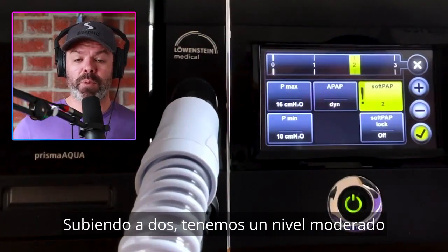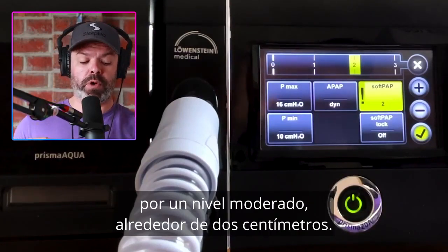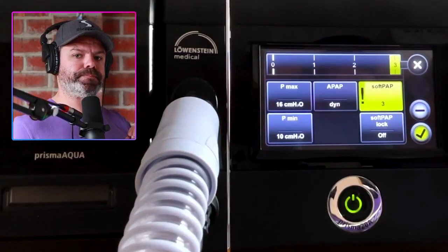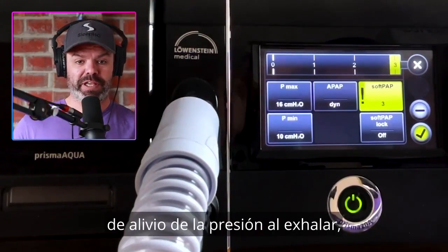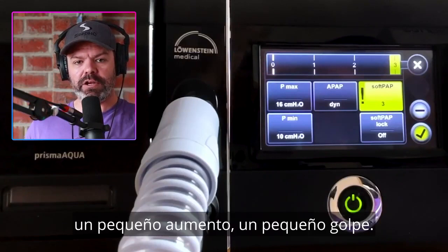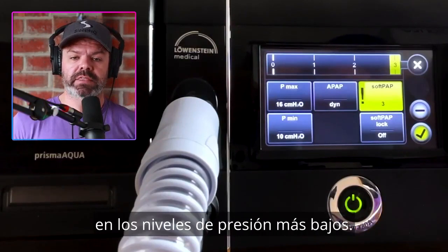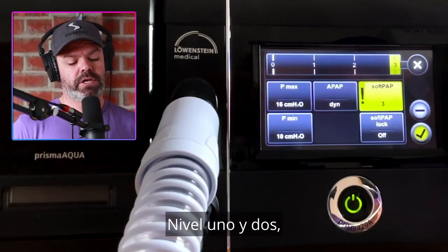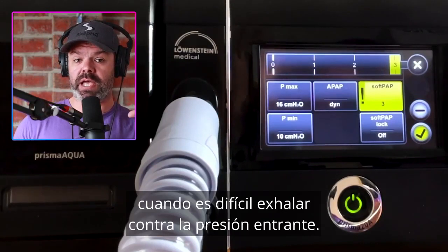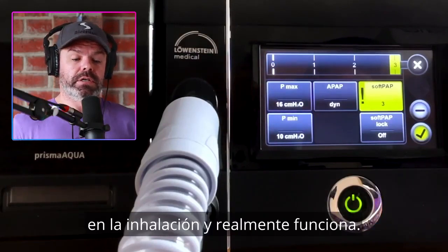Moving up to level two, we have a moderate level of exhalation pressure relief — when we exhale the pressure delivery will be reduced by around two centimeters. Now when we get to level three, it changes a little bit. Yes, it gives you a moderate level of pressure relief as you exhale, but it also gives you a burst of pressure on the inhalation — a little bump. This is really handy for those people that have that suffocation feeling at the lower pressure levels. Level three gives you that little bump on the inhalation and it really works.